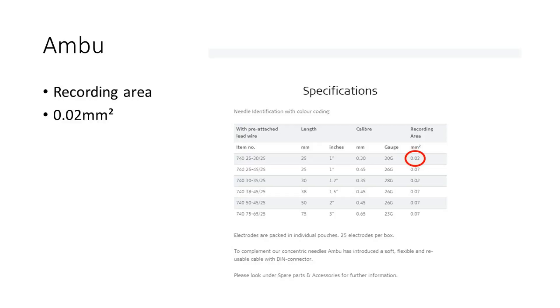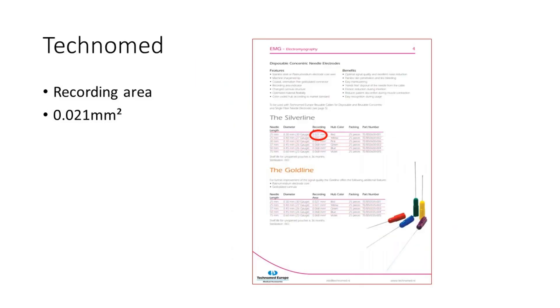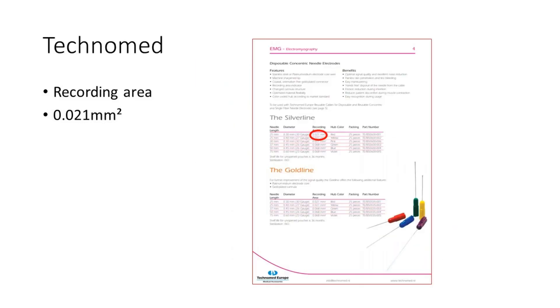But this is all an incredibly narrow depth of field, and I'll have to zoom in as well in order to be able to appreciate just how small the recording surfaces involved are. It's really quite mind-blowing when you look through. So I hope you enjoy the coming segment.